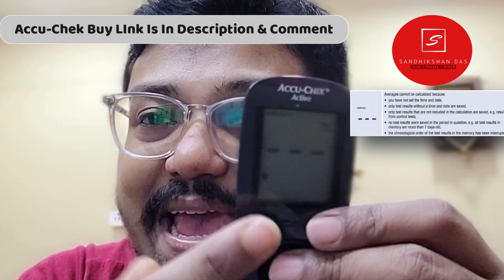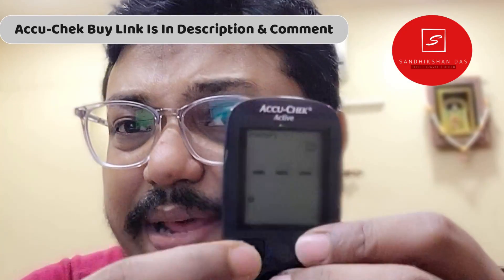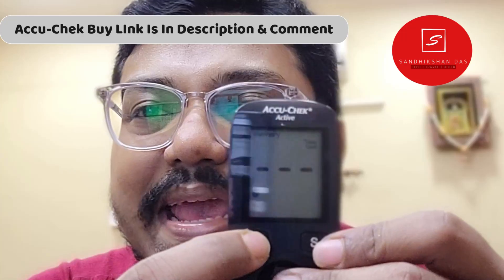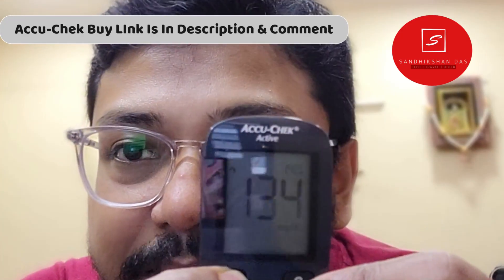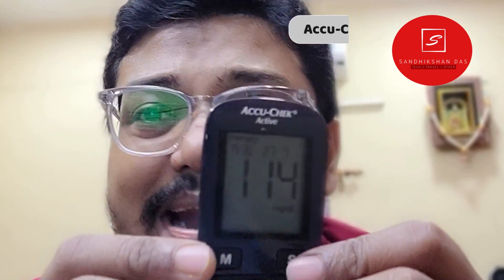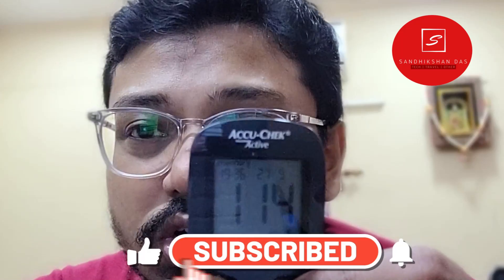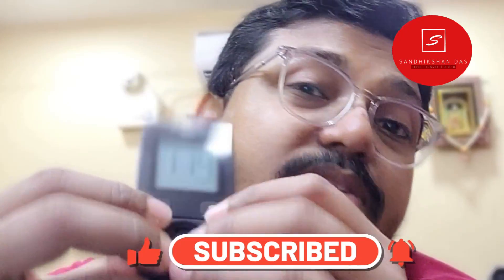When you are in average reading mode, you can press the M button again to go back to memory mode. This is the way you can use your Accu-Chek Active glucometer as your diary, and you can bring it to the doctor when you are visiting. To turn the meter off, you will have to press the M and S buttons both at the same time.